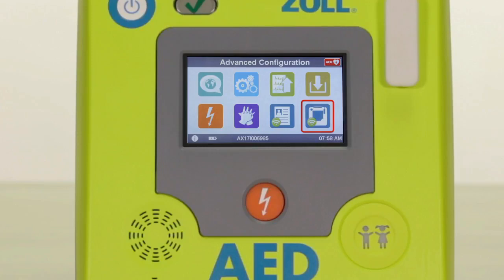The blue icon with the AED 3 and Wi-Fi waves is the Wi-Fi setup for your AED program management. If you have AED program management and wish to transmit your device readiness status over Wi-Fi automatically, this is where you would configure it. Note that automatic transmission of device readiness is not available for all program management software products. Contact the authorized ZOLL distributor you purchased your AED 3 from for information regarding compatible program management software products.